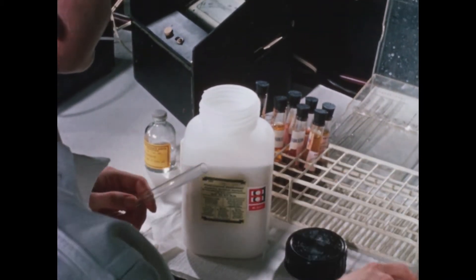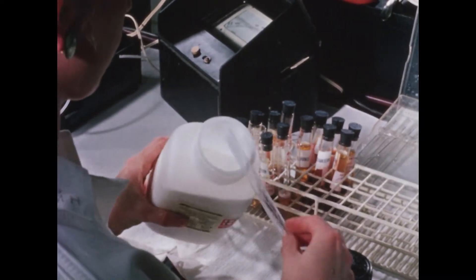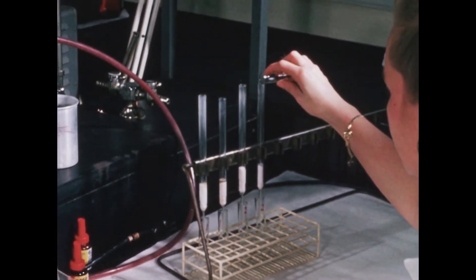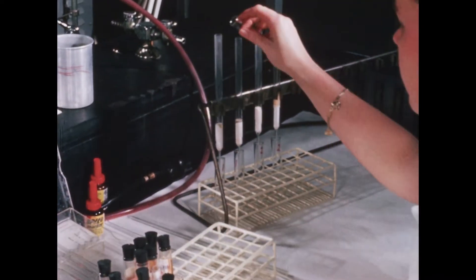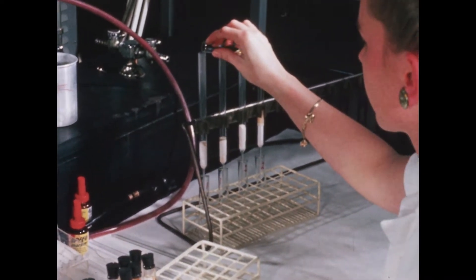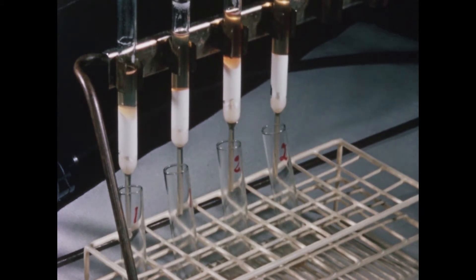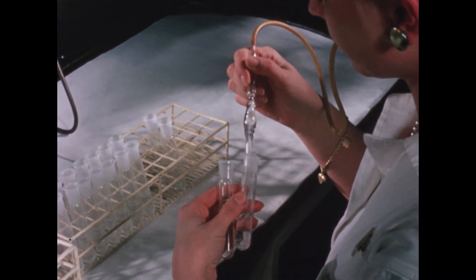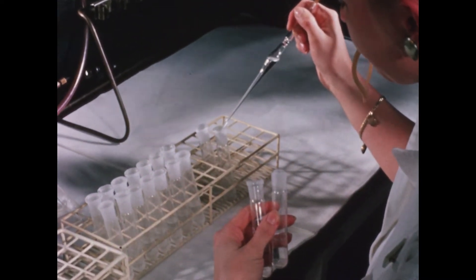The principle of the method is to add to the serum specimen iron ions to saturate the transferrin with iron. The surplus iron ions are then removed by running the sample through an aluminum oxide column which binds free iron ions but not protein bound iron. The latter may therefore be determined by an ordinary iron analysis of the fluid which has passed the column.